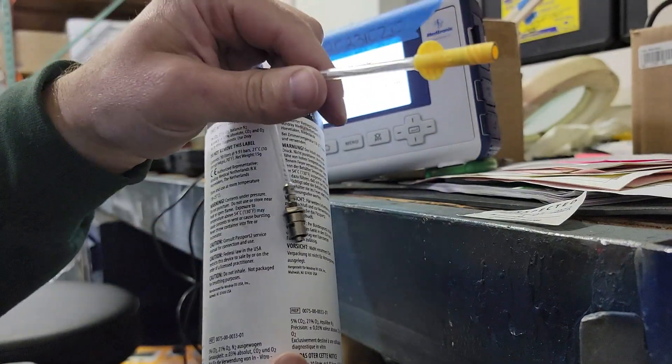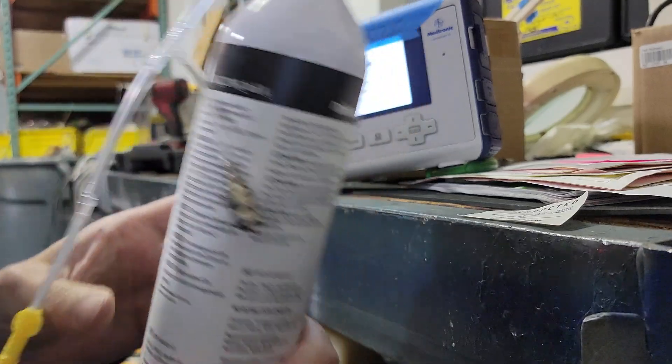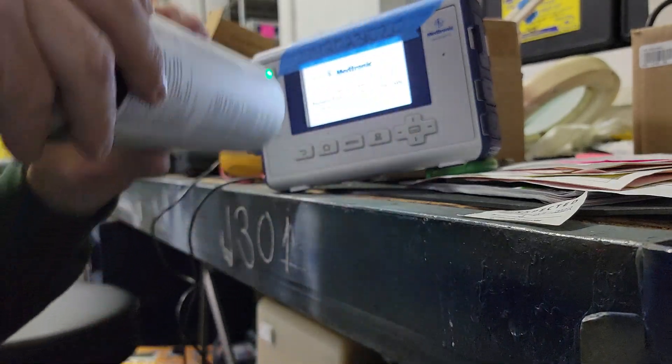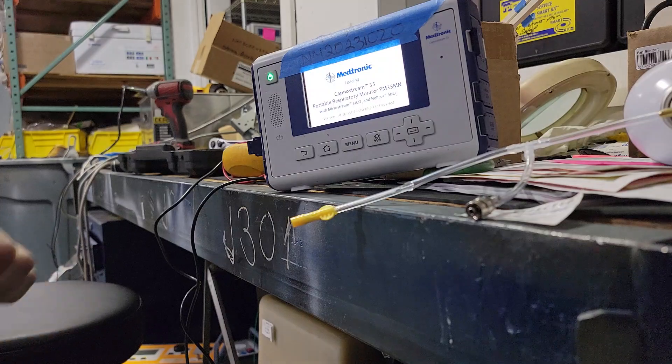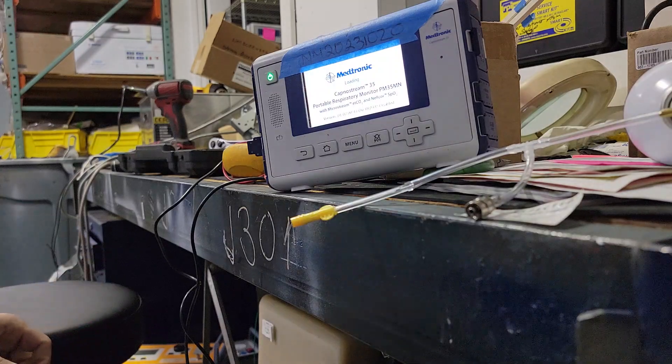I made a little fitting for it. I will show you the port in a second. I'm just going to turn it on.